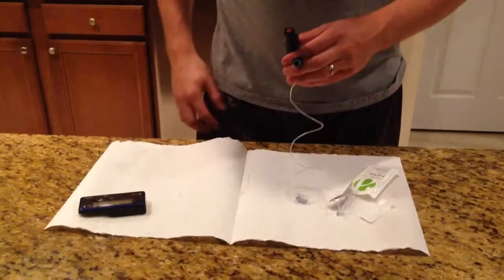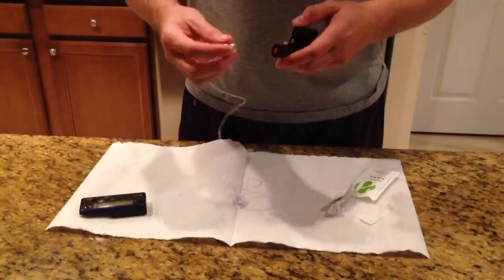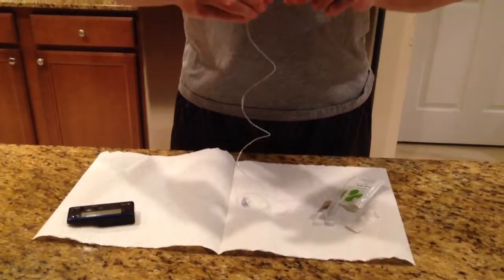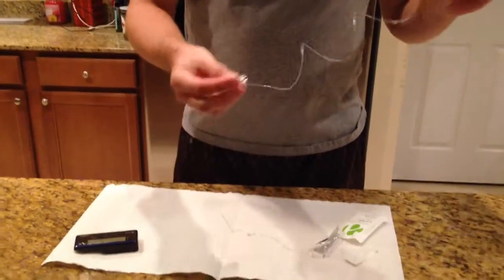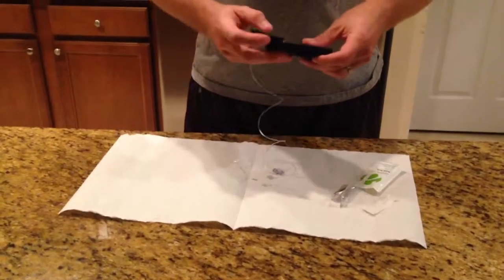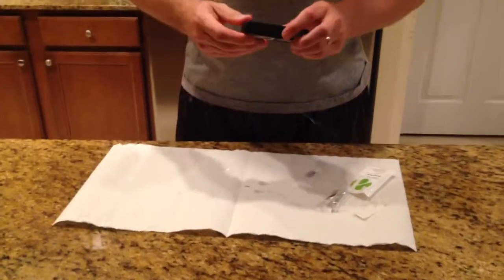I just changed my site yesterday, so I don't need to worry about that. I'm going to go ahead and twist it on here. When you do that, the prime's already out and primed — you can see it on the paper towel. And then snap it back together.